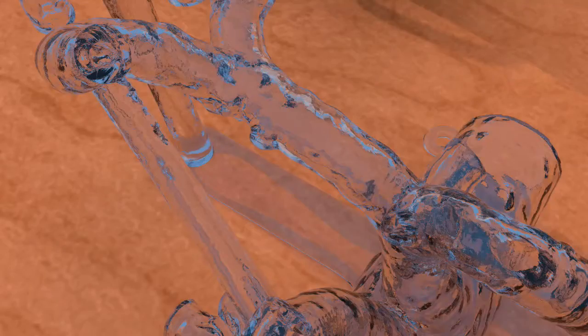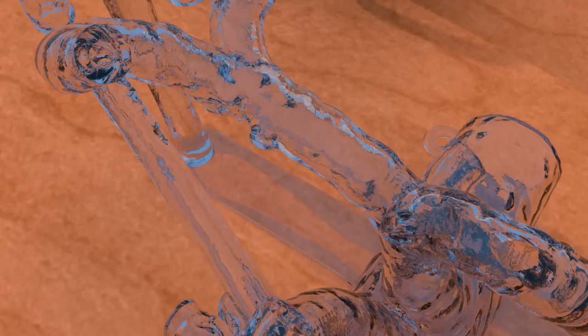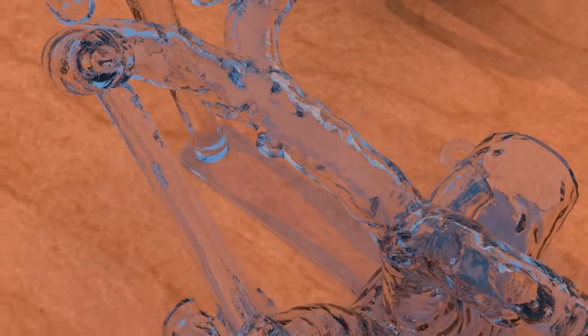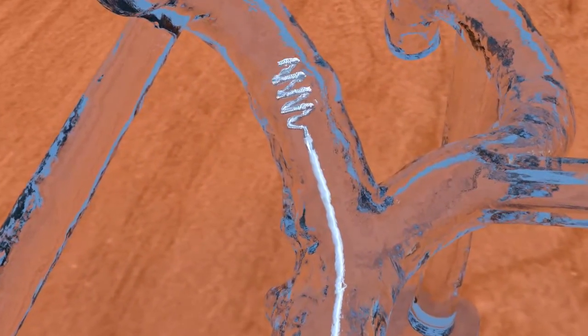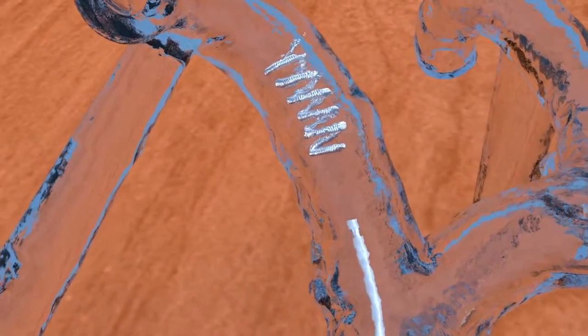These arteries are designed to allow realistic simulation of endovascular procedures, such as coil embolization. In this example, the gastroduodenal artery is embolized, as might be done for upper GI bleeding or in preparation for yttrium-90 radio embolization of the liver.